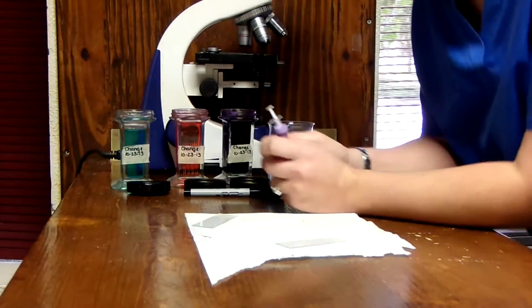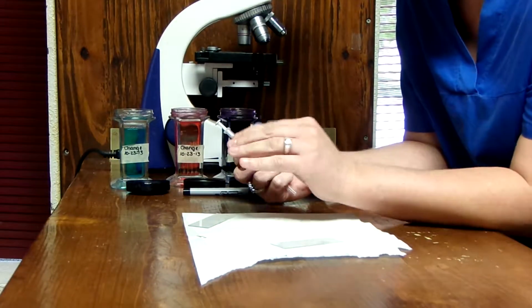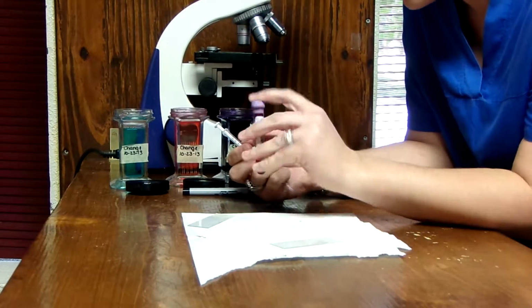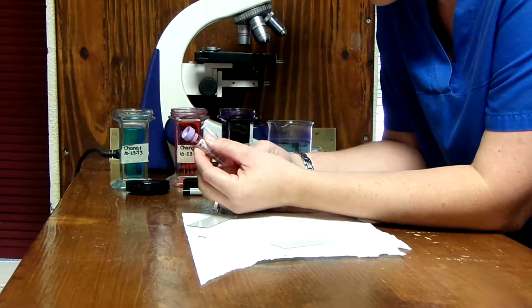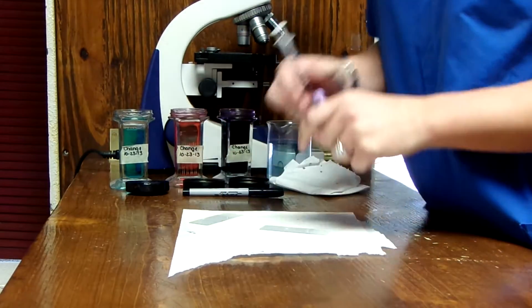Surgery and anesthesia pathology task number 3, and we're going to be creating our blood film. Okay, so we just collected this blood from Wiggy, and what we're going to do is just gently invert it about 6 times, and the reason that we're doing that is so that the blood will interact with the EDTA that's in the tube.